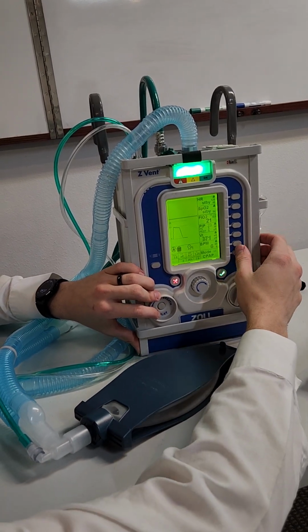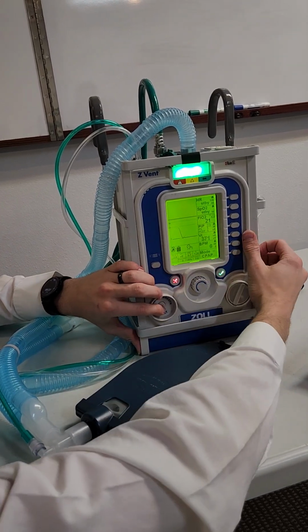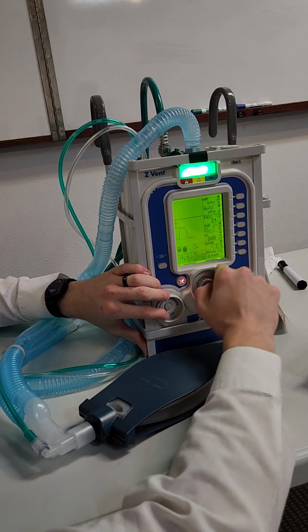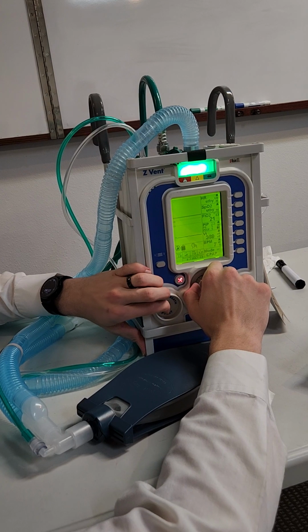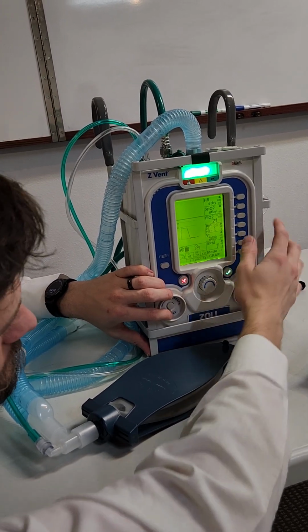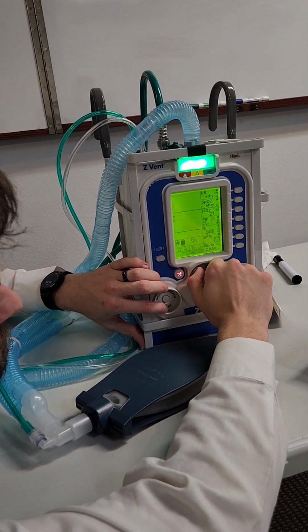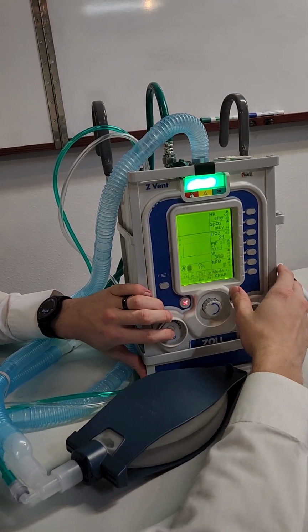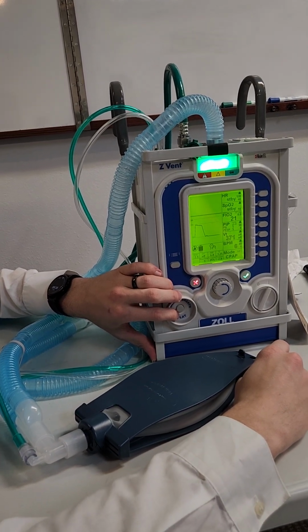To change the alarm ranges, instead of going to an alarm screen, it's right here along the side, right underneath the alarm bell. So click, and we could change this. And this is for the measured value. It's because it wouldn't do us any good to have an alarm for something that we set. So if I set this alarm, it'd be for, I don't know, a PIP of 8. Anything less than 8 I want it to tell me about. So you're alarming at the low values. Yep.